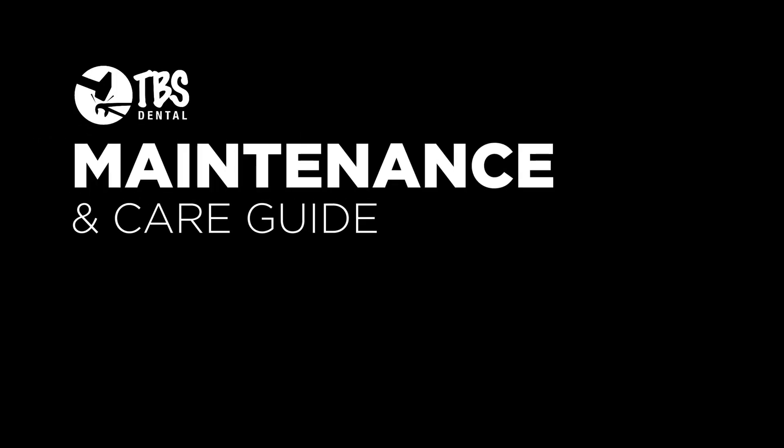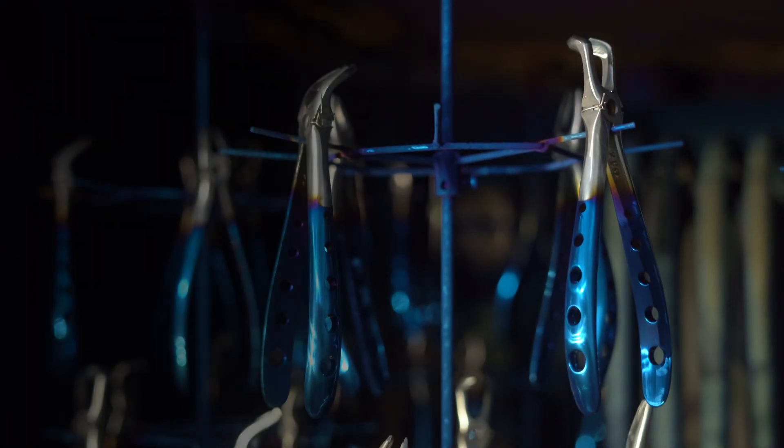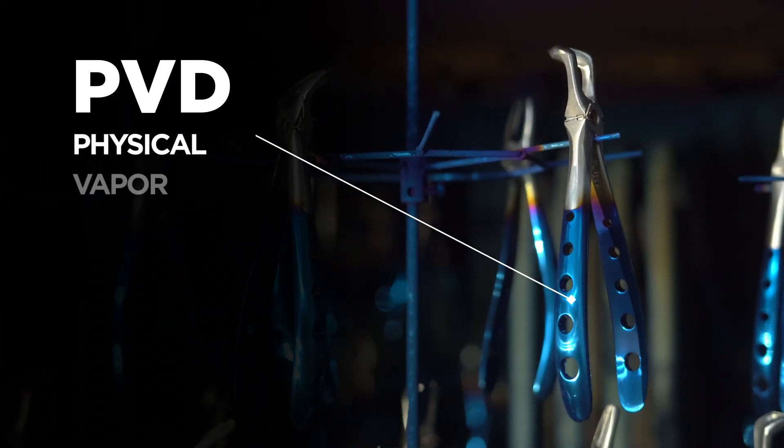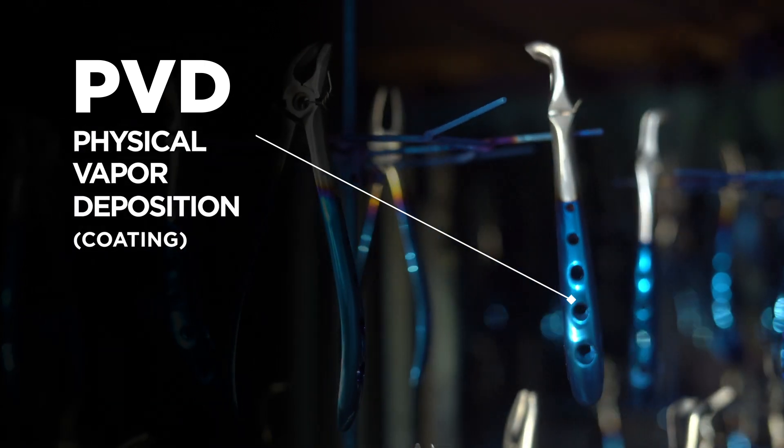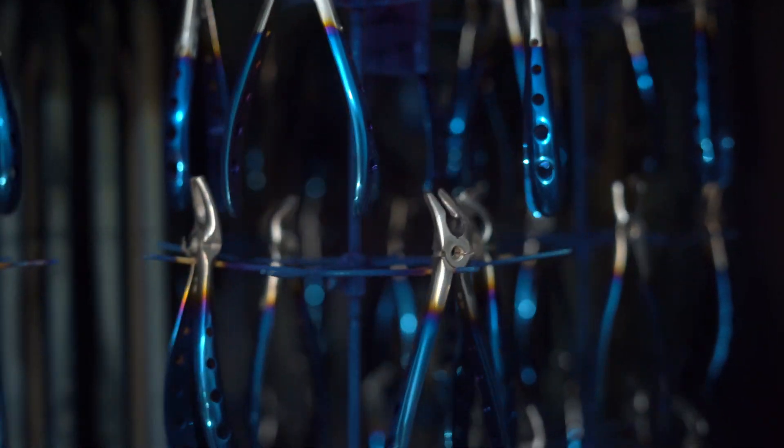TBS Dental Instruments Maintenance and Care Guide: PVD Coated Colored Instruments Maintenance. PVD, Physical Vapor Deposition coating, increases the surface hardness of instrument tips and reduces pullback when manipulating composite materials.